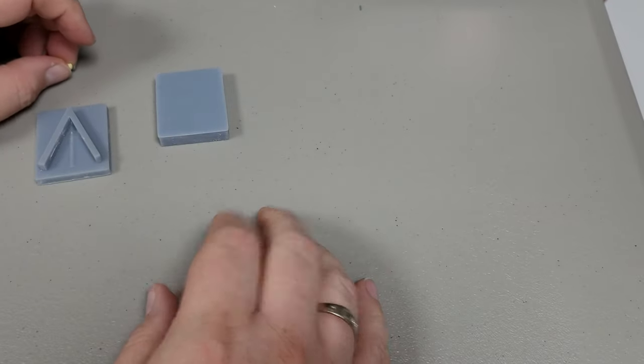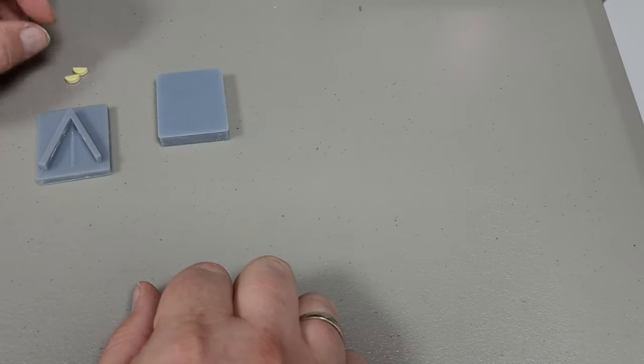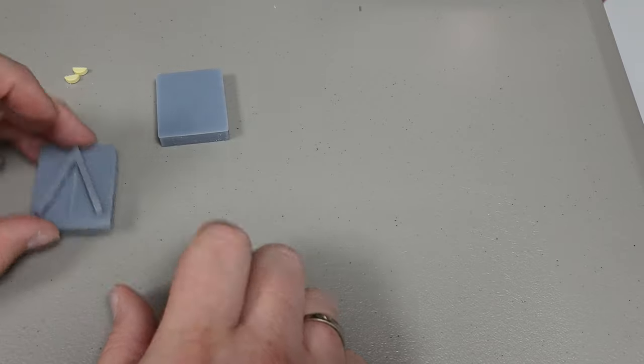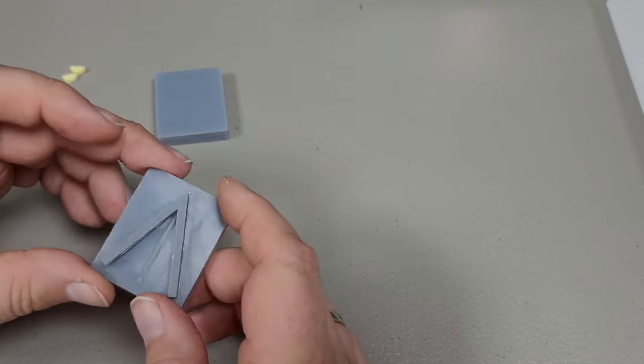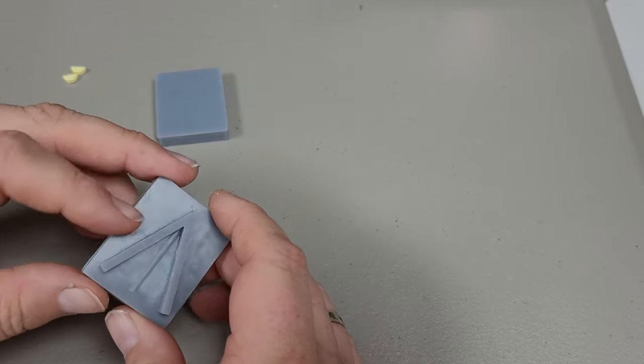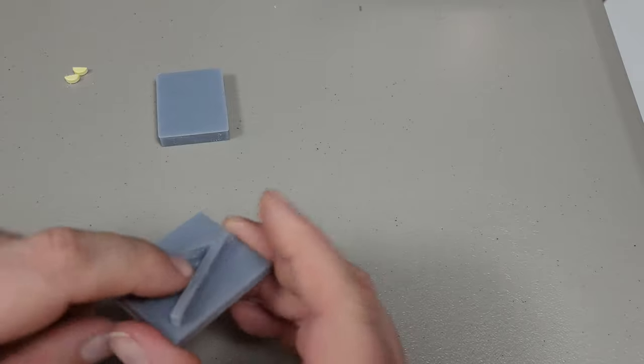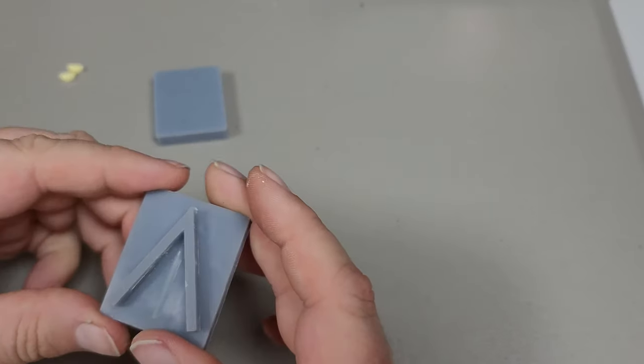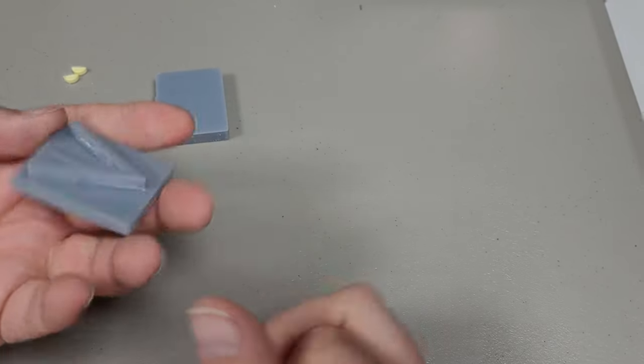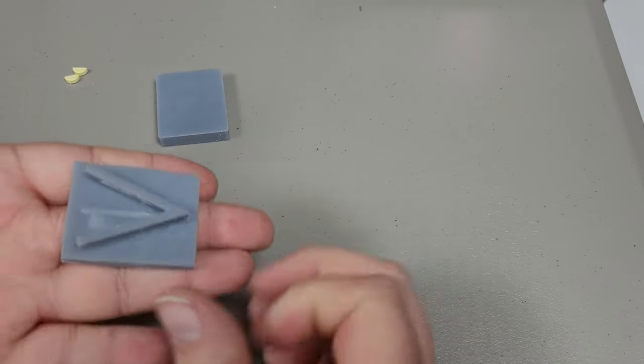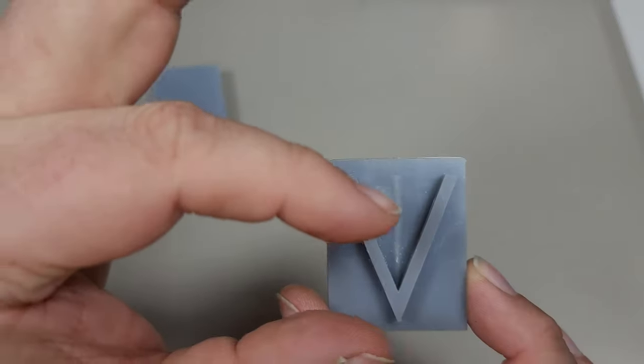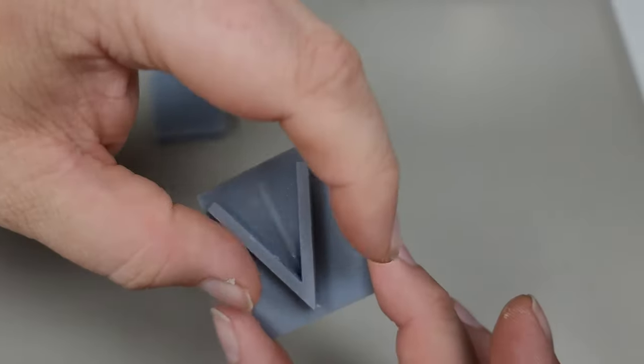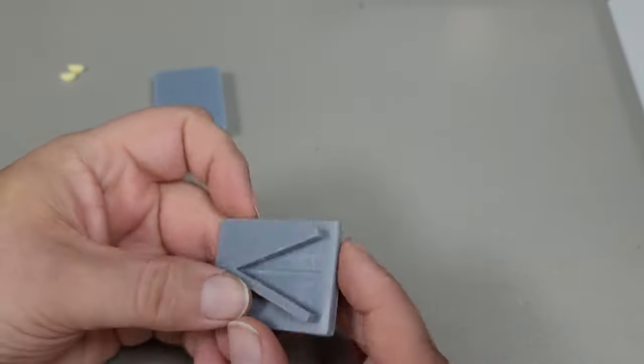Unfortunately, if you put the score down, right now, it does not cut it evenly. So I've still got some work to do. I think my ridge needs to be a little taller. And the first draft was like this big. I didn't actually do any measuring before I made it.